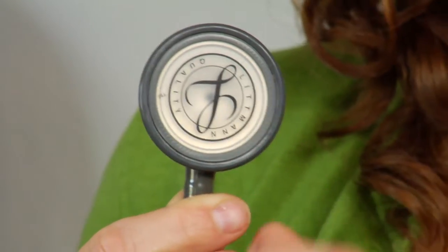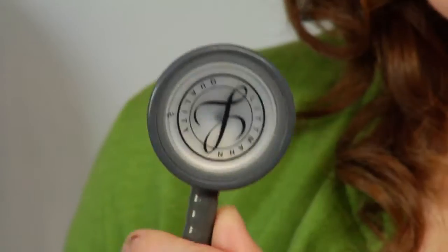So a couple of things. One, there's different components of the stethoscope that affect the way that it works. There is the diaphragm of the stethoscope, which is going to go on the chest. It's a chest piece.